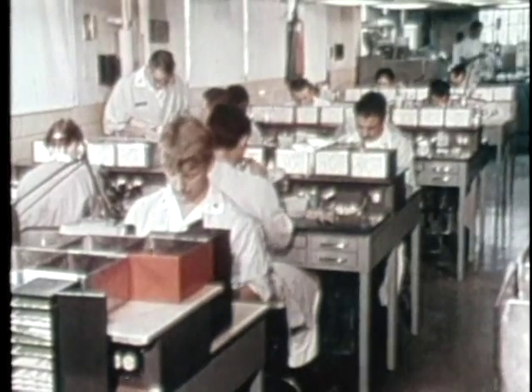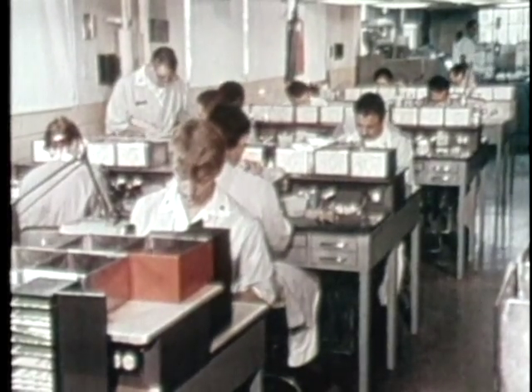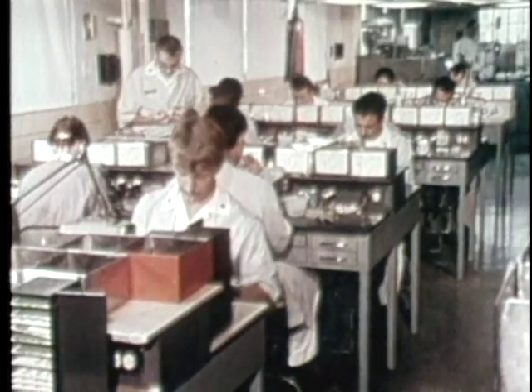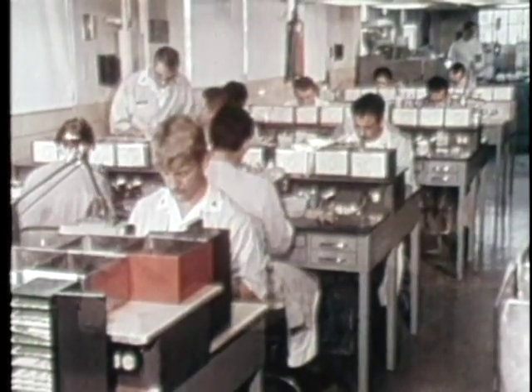Centric jaw relation records are an essential component of the materials submitted to the regional dental activity for the fabrication of various prosthodontic appliances. The proper preparation of these records is crucial to the final success of the appliances.